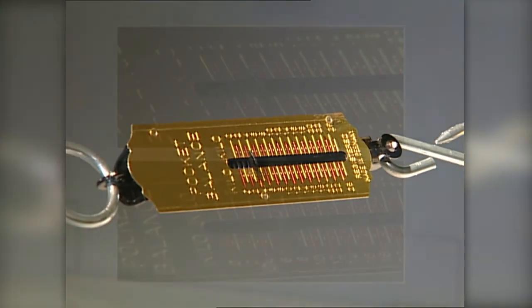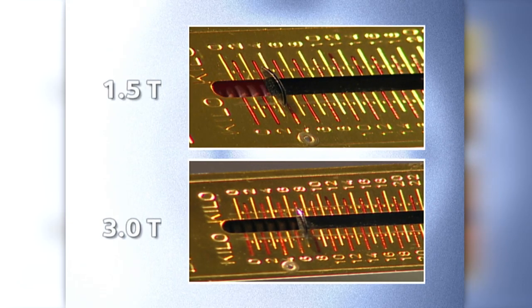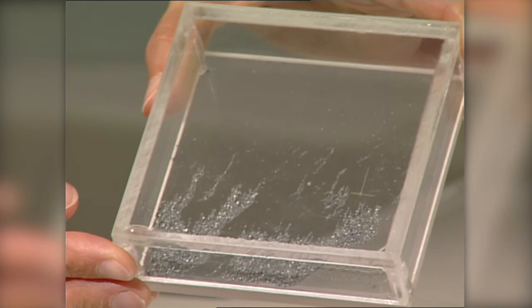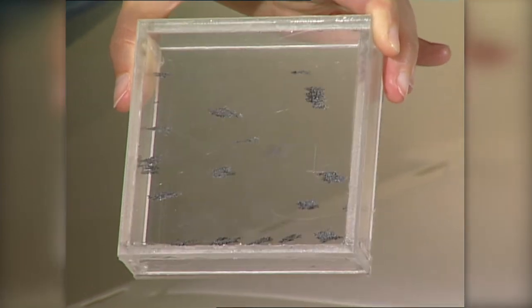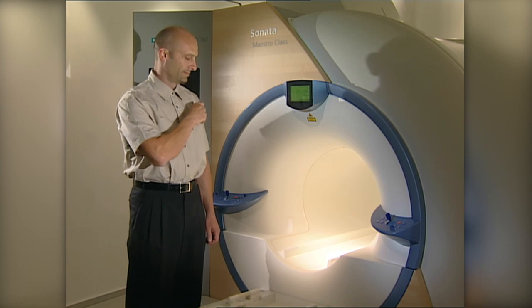Another experiment can be performed with a 1.5 and a 3 Tesla system. A scale shows the different forces on both systems. Compared to the weight of the scissor, the attractive forces are 50 and 100 times higher. Magnetic fields from magnetic resonance imaging systems are not directly perceptible, and their dangers are often underestimated. They exert an enormous attractive force on magnetic objects and objects containing magnetizable material.